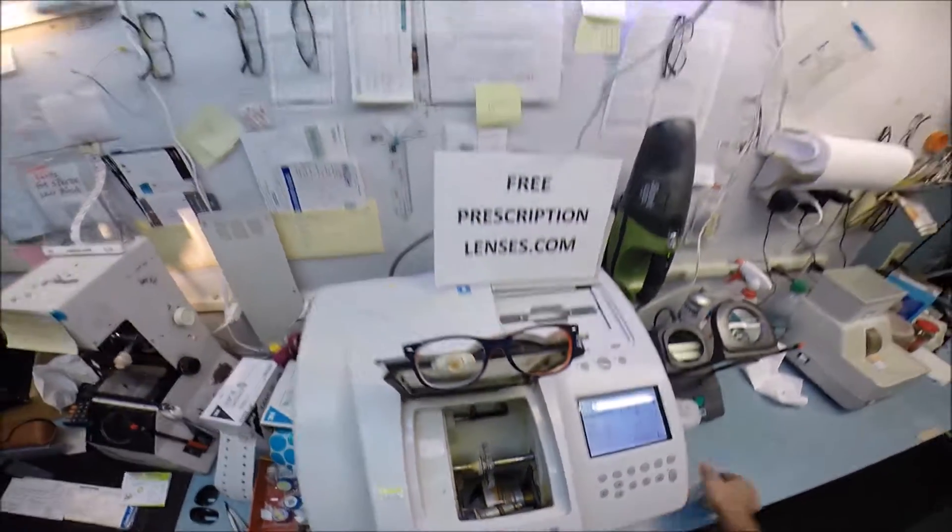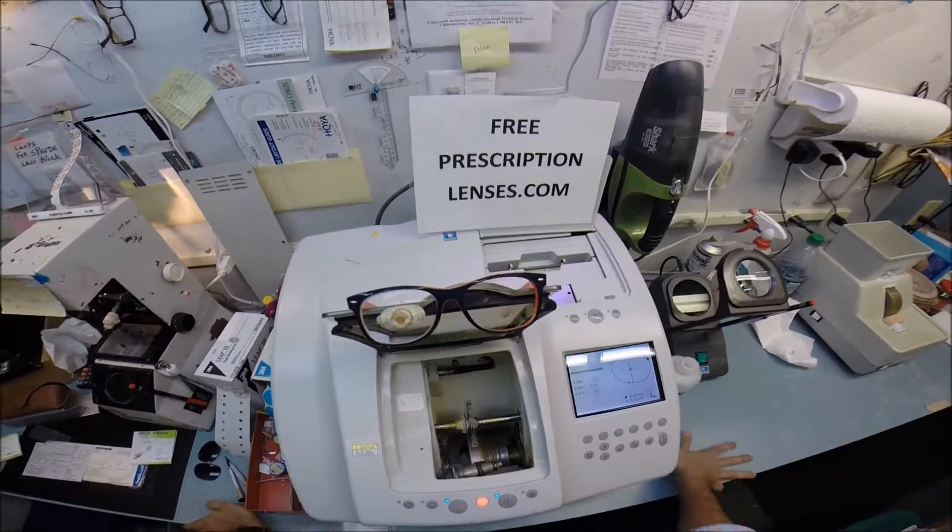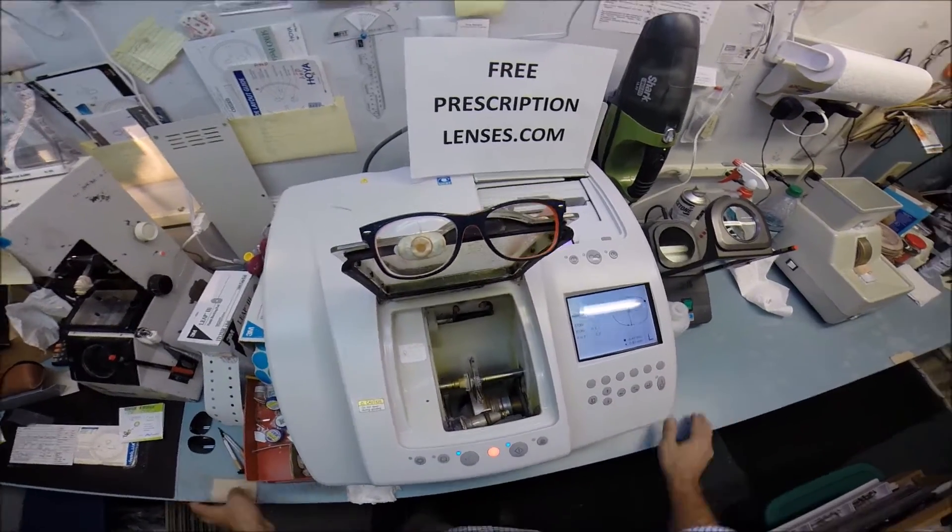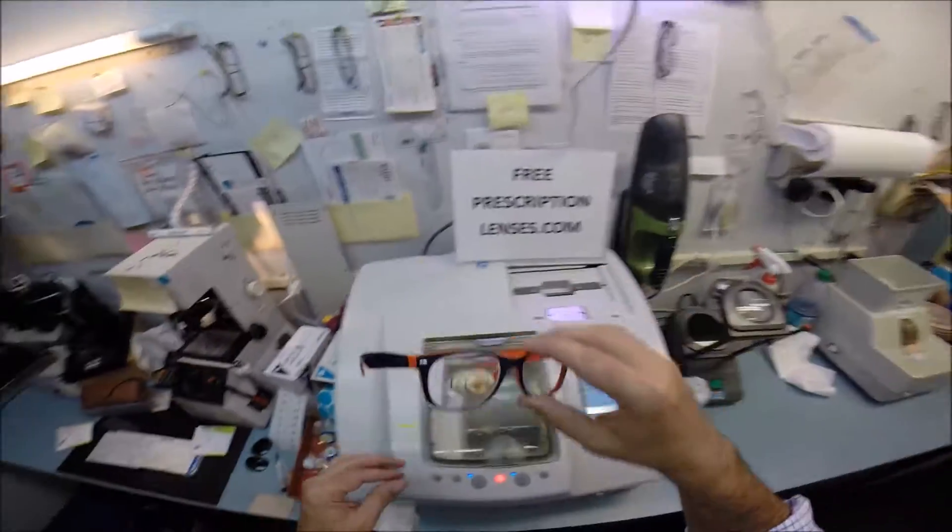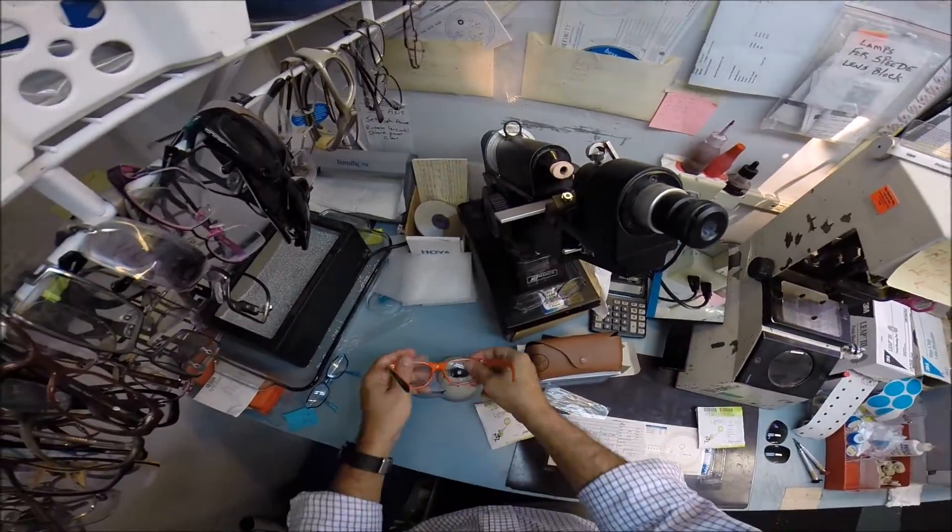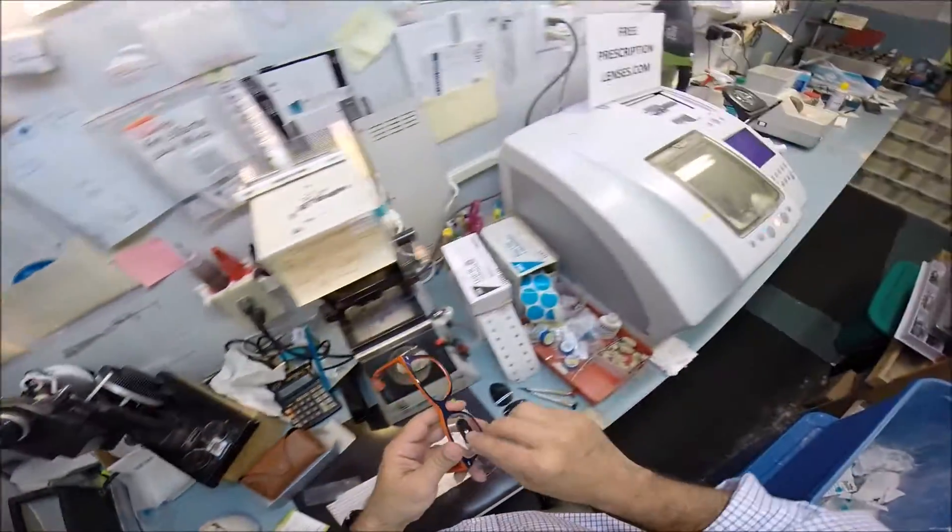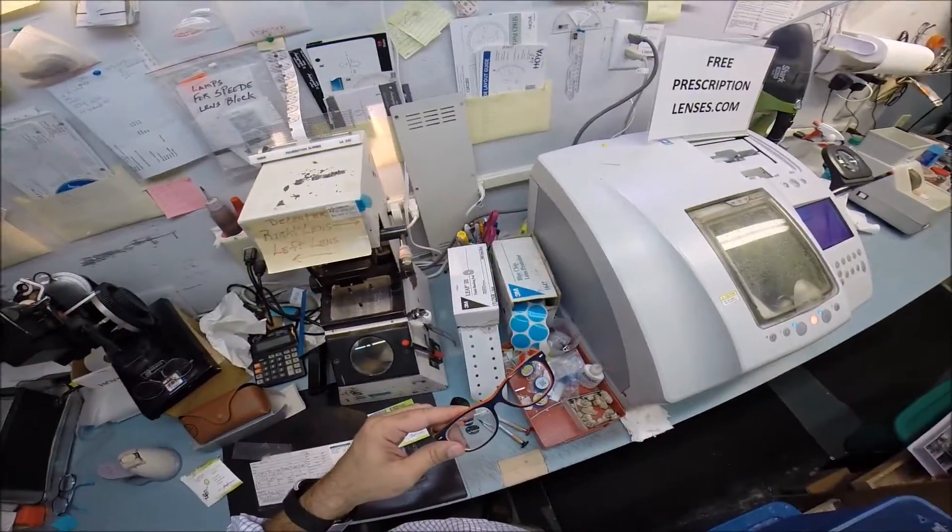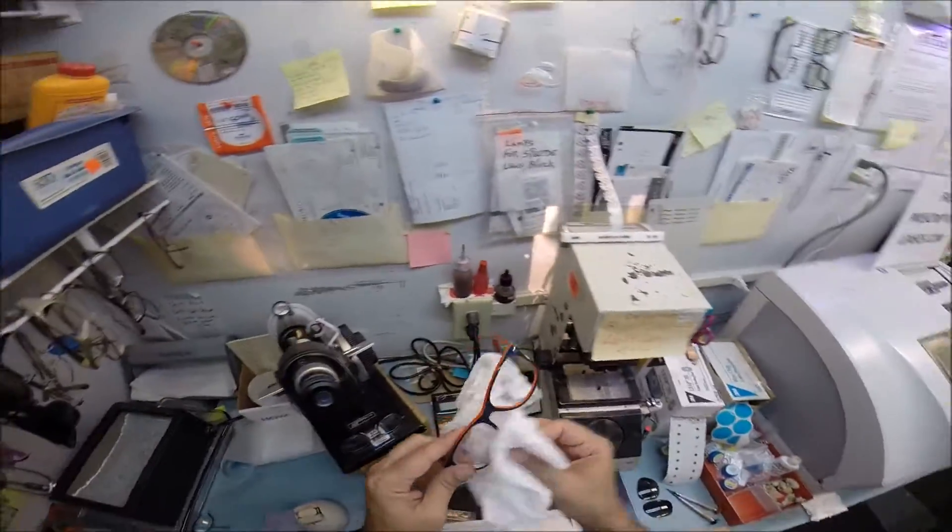So, this block is no longer needed. I'm going to take it off. Pull that sticker off. Try your lens.